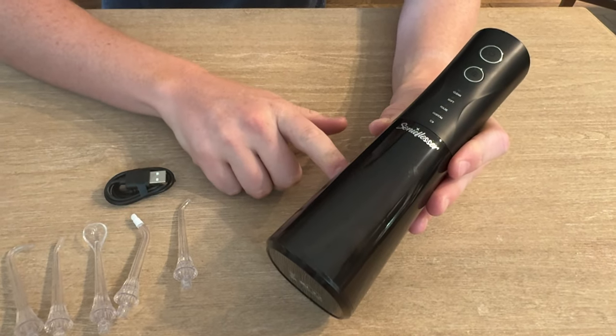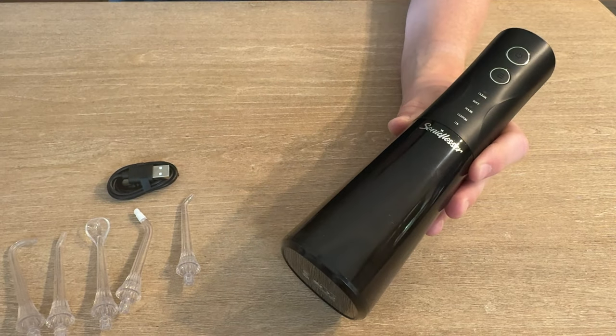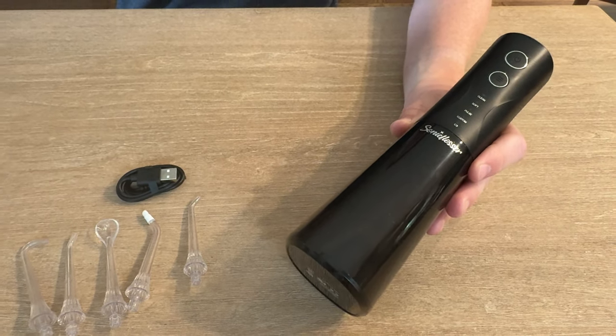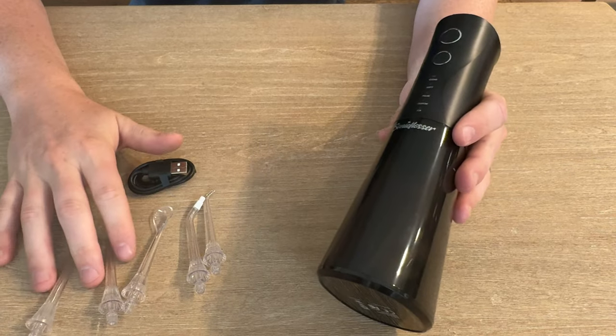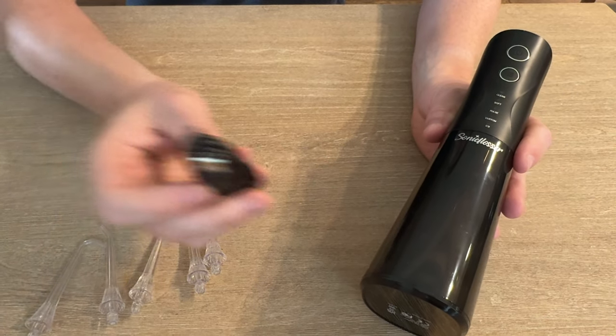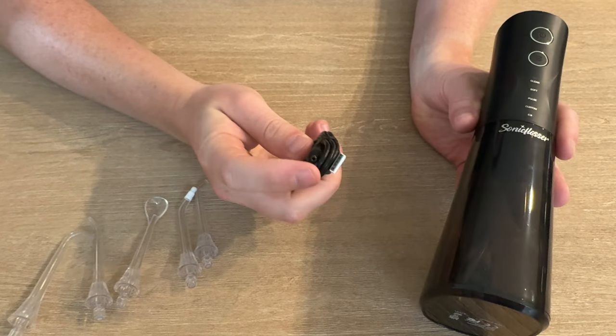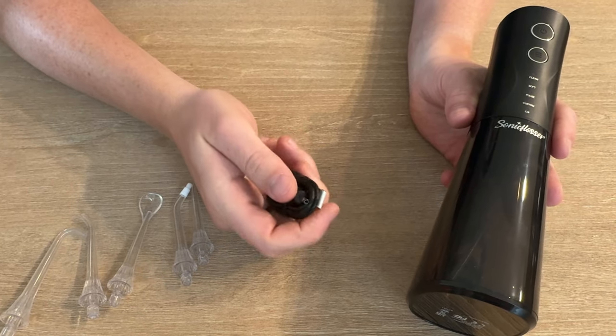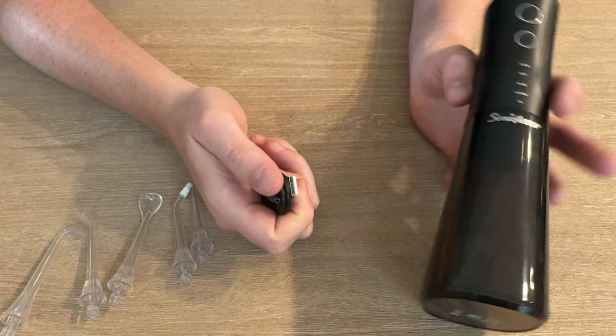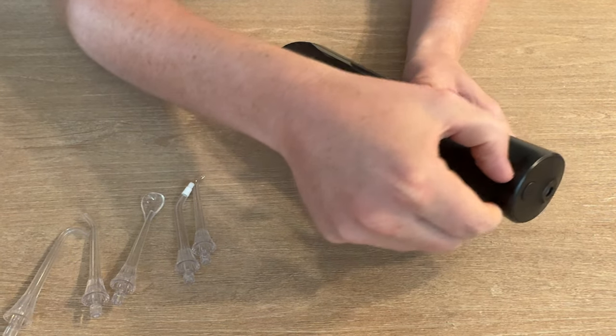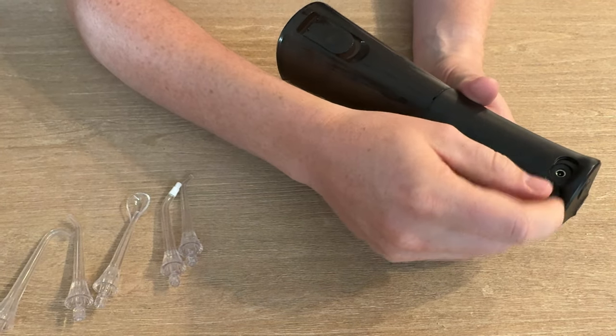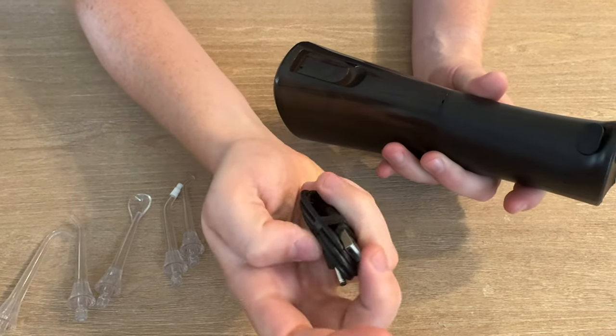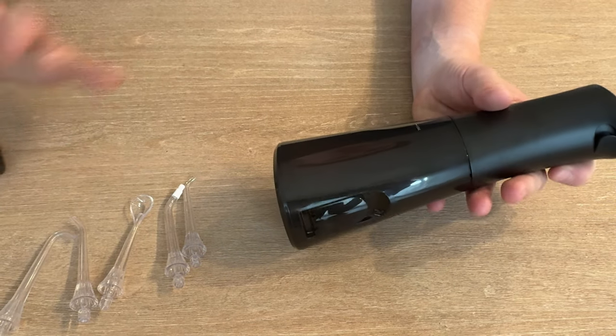Here's a close-up look at this sonic flosser with the removable and interchangeable heads. The great thing is it comes with this power cord that has a proprietary socket that goes right in the back under this rubber top piece and then goes into a USB, so it's rechargeable, which is really nice.